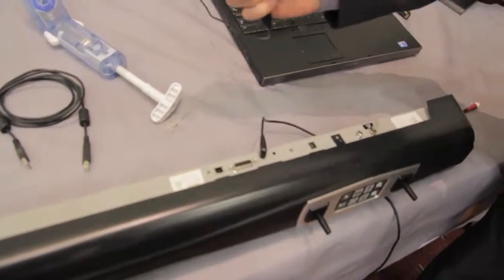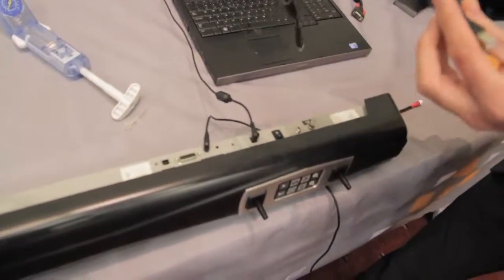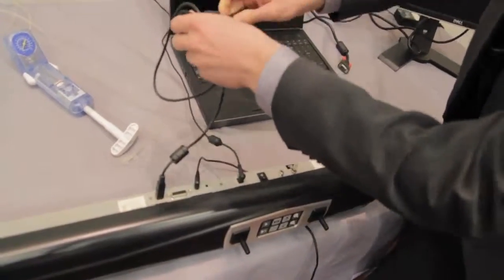We then attach the power cable to power. We'll then take the USB cable, plug the USB cable in and attach to the laptop.